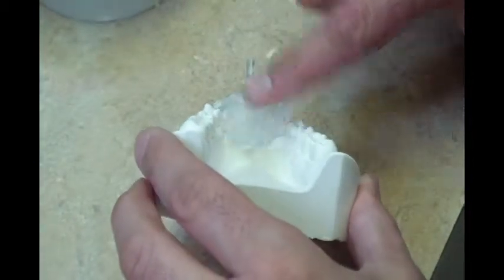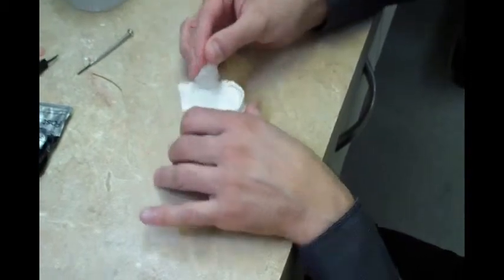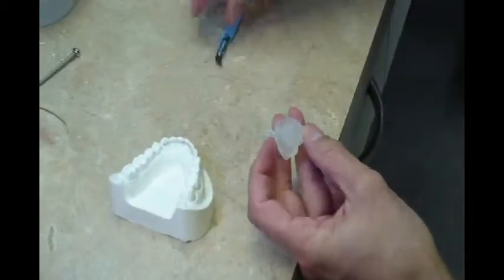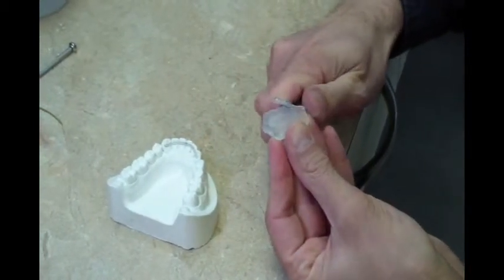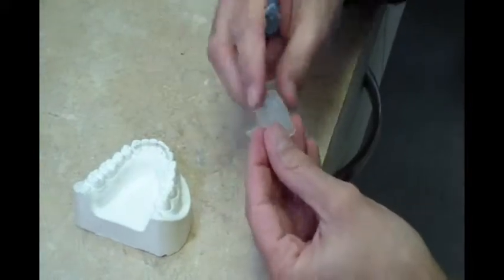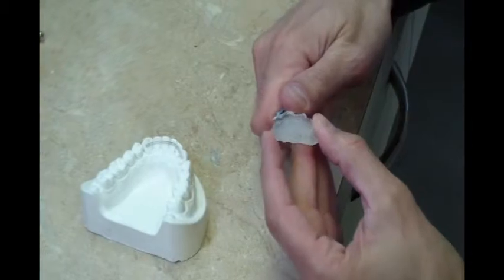A negative space of the wax position will now be captured in the index. Once cured, remove the silicone index and trim it to remove any areas of undercut or obstruction. This will make it easier to reapply the index to the model and in-mouth at later stages. Be sure to maintain contact of the index with the incisal surfaces of the teeth.